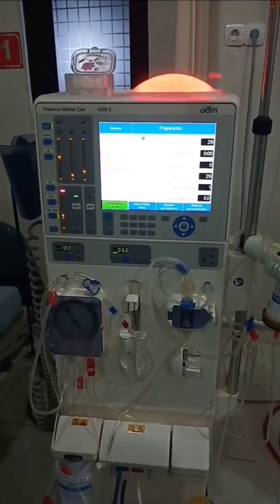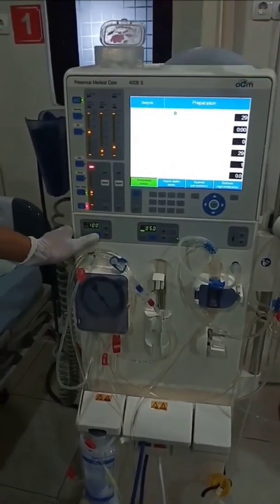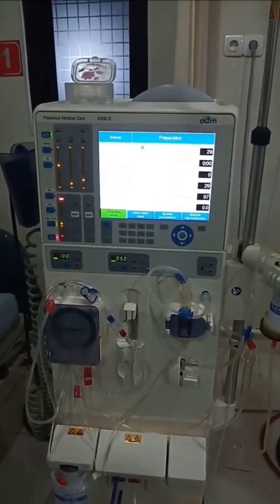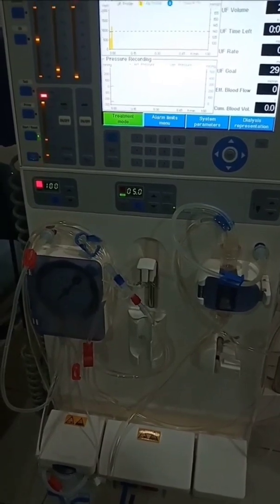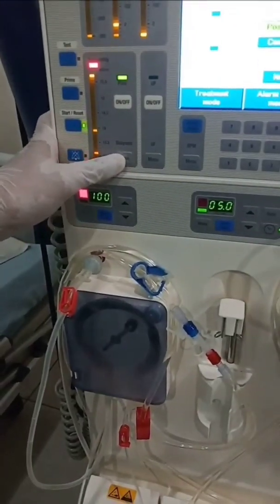Connect the end of the infusion to the end of the arterial lines. Open the infusion clamps and turn on Qb at 100 rpm. Flow normal saline through the arterial and venous lines and the dialyzer in the extracorporeal circulation until it is clean.